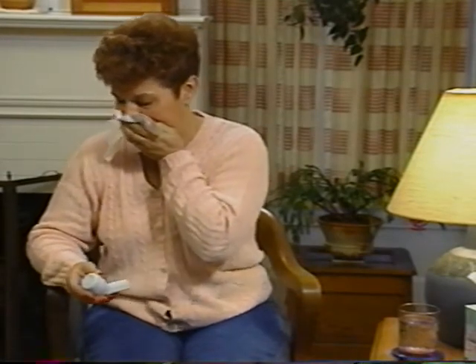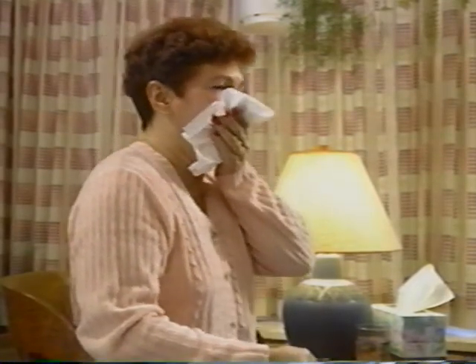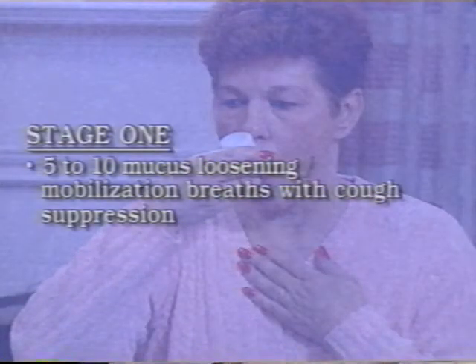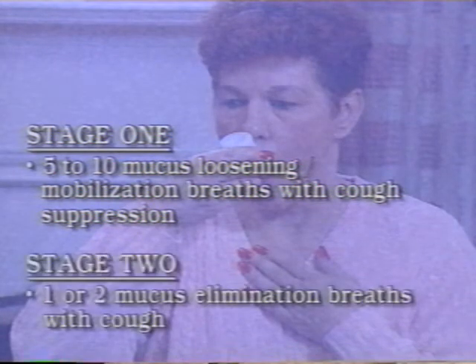If mucus is not easily coughed out following 1 or 2 elimination breaths, attempt a huff maneuver, like trying to huff a breadcrumb out of your throat. The standard series of 5 to 10 loosening mobilization breaths with cough suppression, followed by 1 or 2 mucus elimination breaths with cough, should result in successful airway clearance. Beginning flutter users, or those with particularly thick mucus, may learn that multiple repetitions of stage 1, mucus loosening mobilization, are necessary before performing stage 2, mucus elimination.